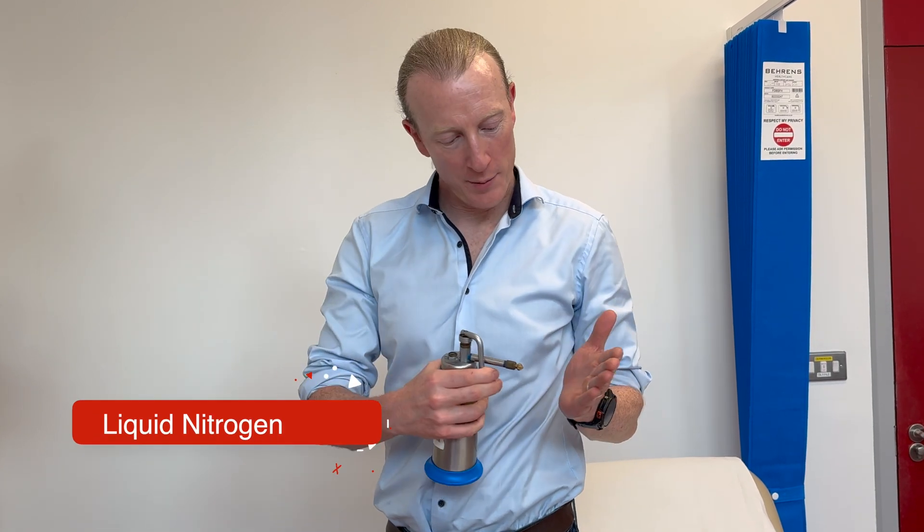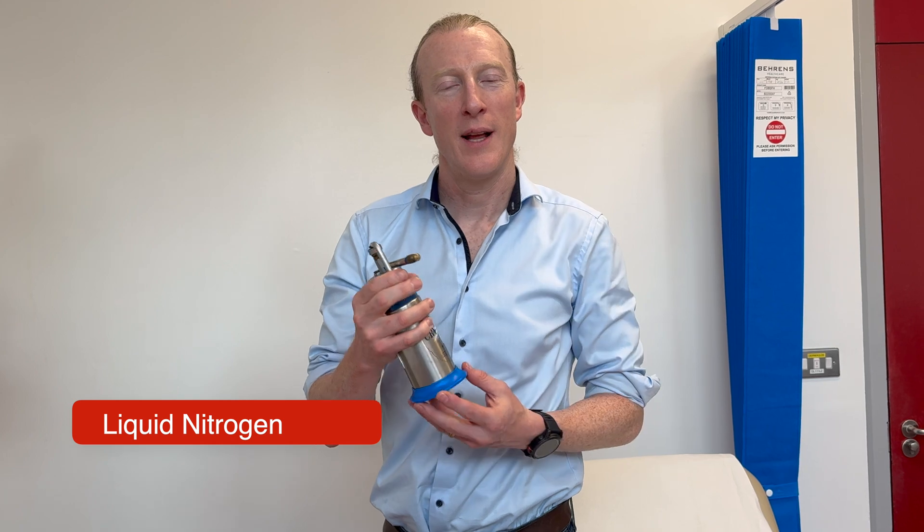There are multiple different freezing agents. I use three different forms of cryotherapy currently in my practice. Firstly, liquid nitrogen. It's extremely cold, having a boiling point of minus 196 degrees C. Unfortunately, it's quite difficult to obtain and store, which can limit its usefulness in practice.